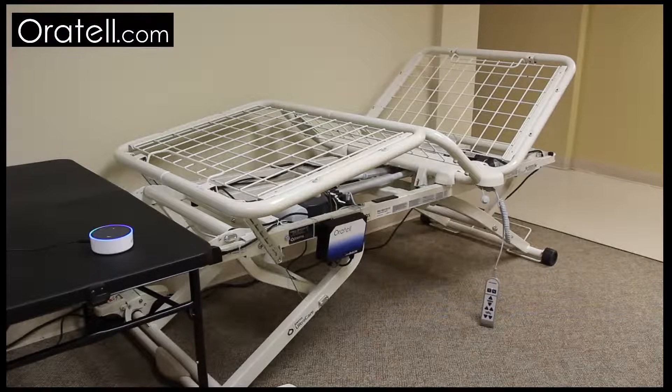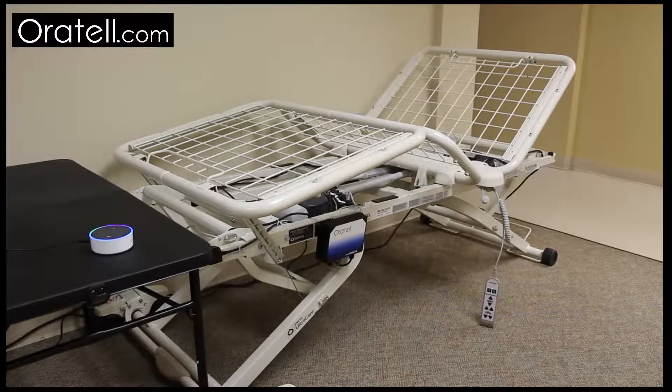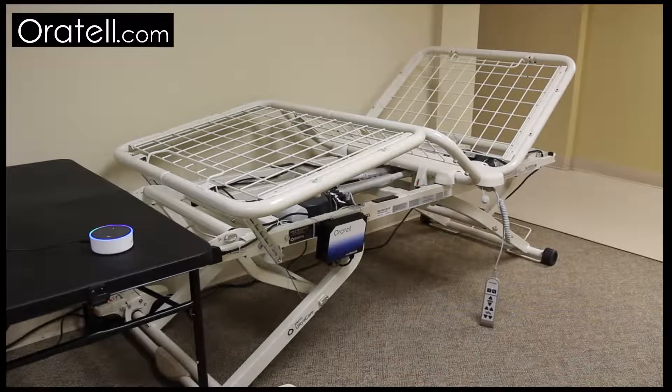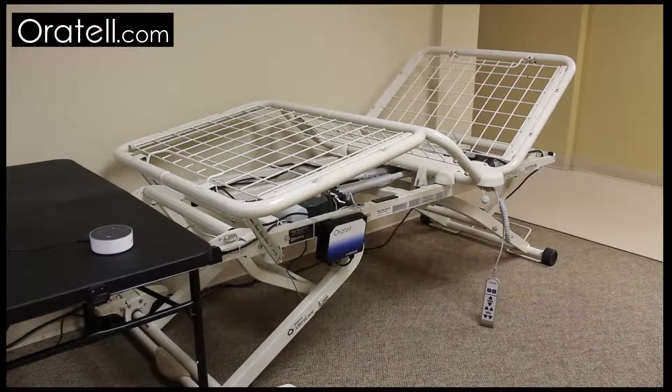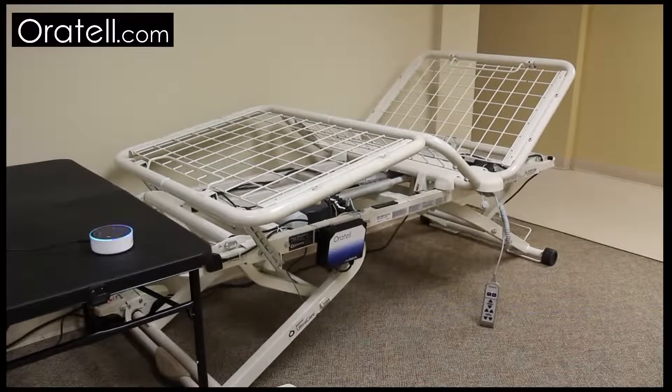Alexa, tell bed control, lower the bed down, 3. Lowering the bed down, 3.